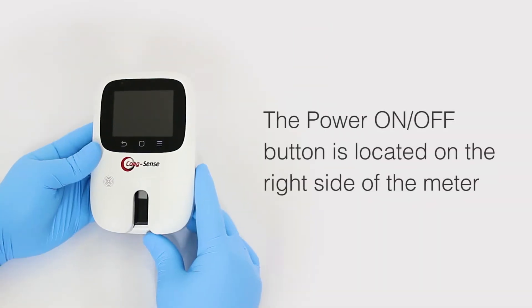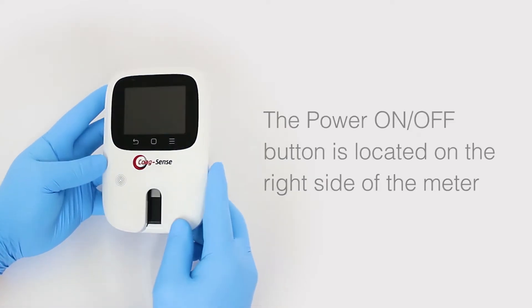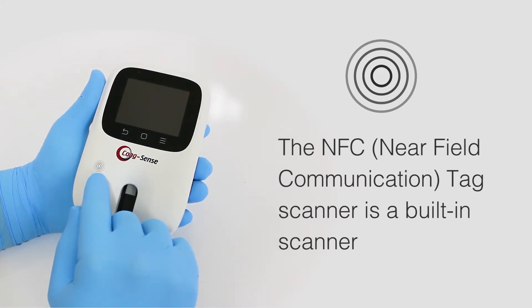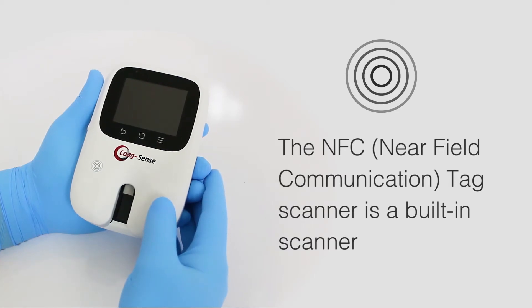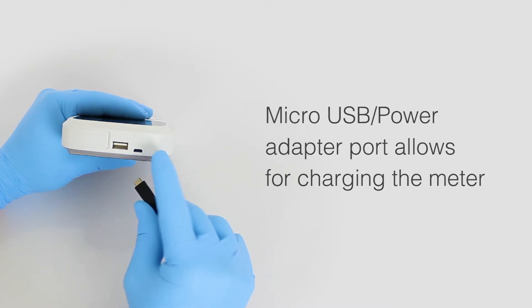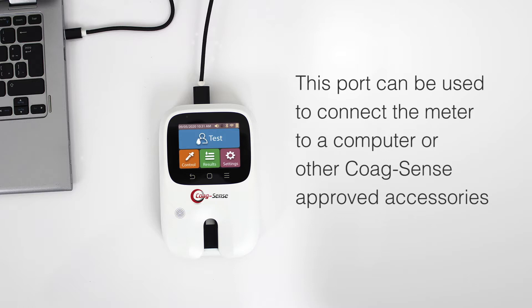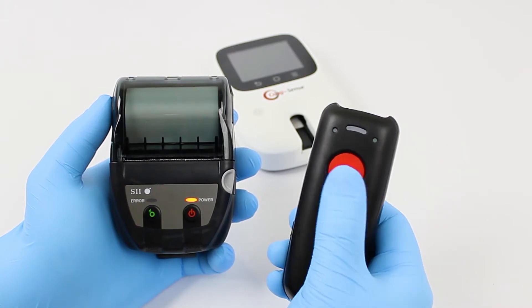The Power On-Off button is located on the right side of the meter. The NFC Near Field Communication Tag Scanner is a built-in scanner used to scan the NFC card containing the strip control and test strip data. The Micro-USB Power Adapter Port allows for charging of the meter and can connect the meter to a computer or other CoagSense-approved accessories. A printer and barcode scanner can also be used wirelessly.